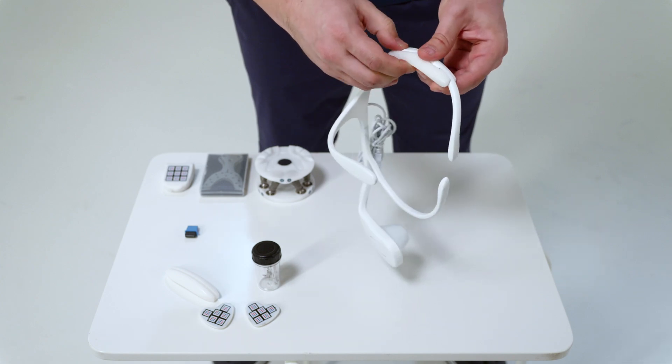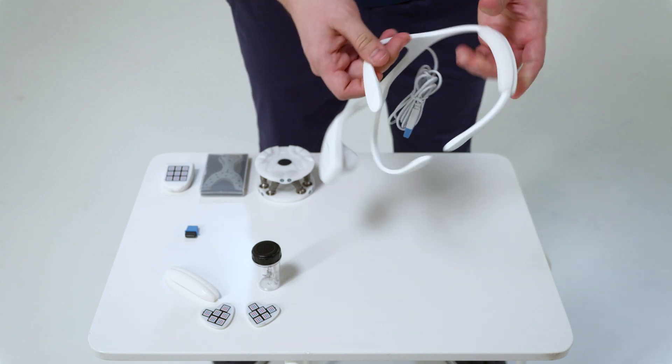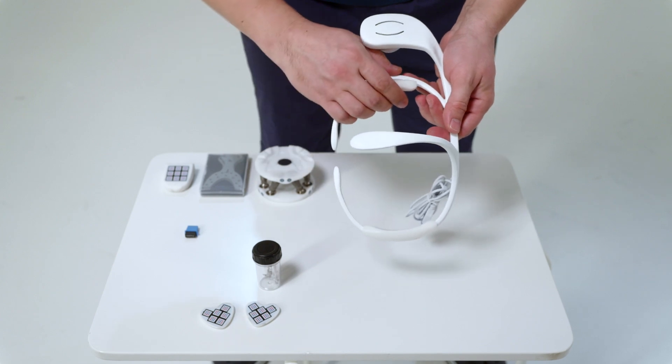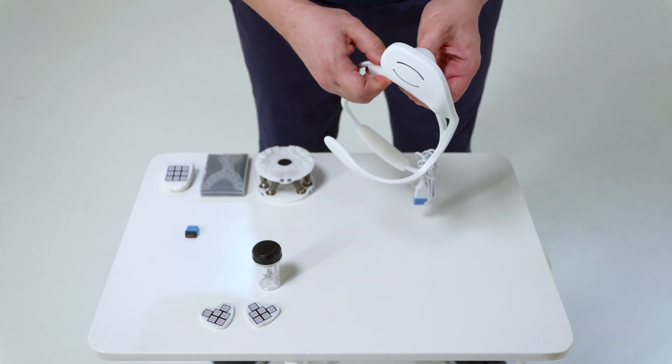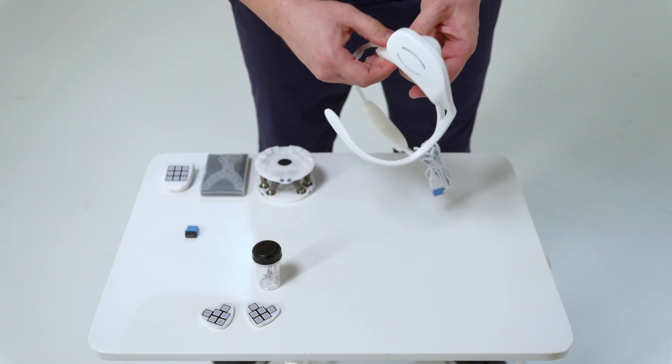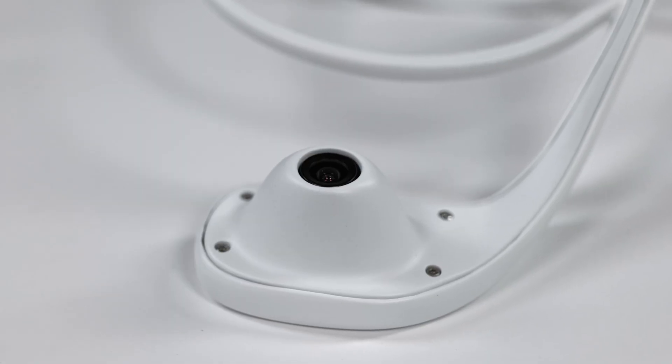Silicone inserts are attached to the axiograph. The axiograph connects to a computer and records all movements of the lower jaw using the bottom camera.